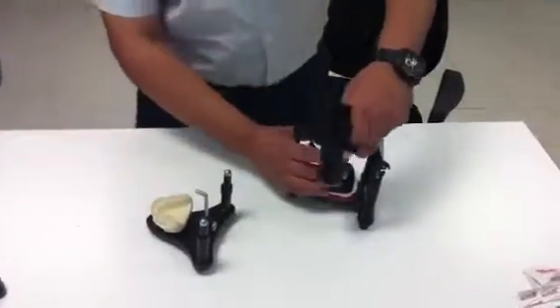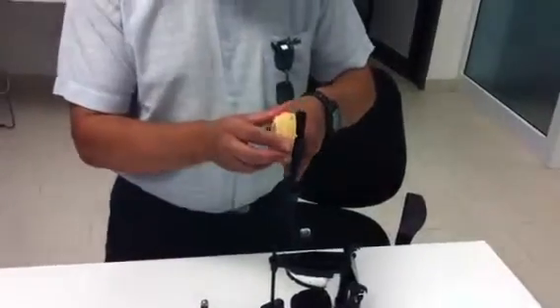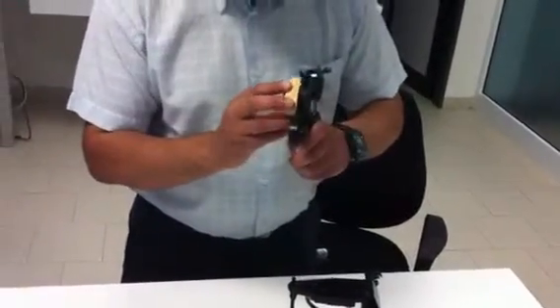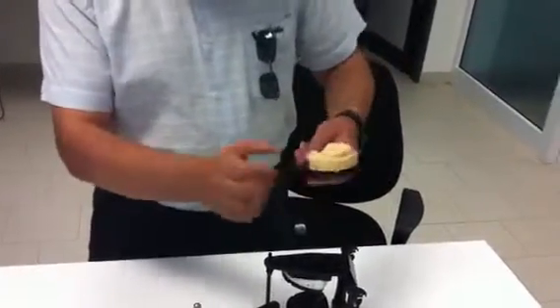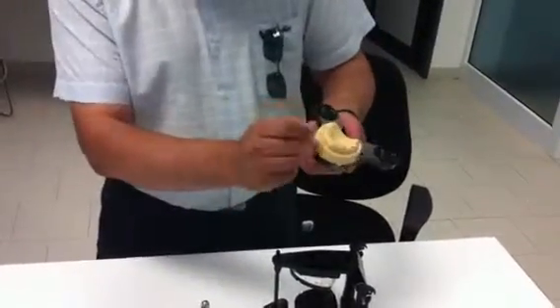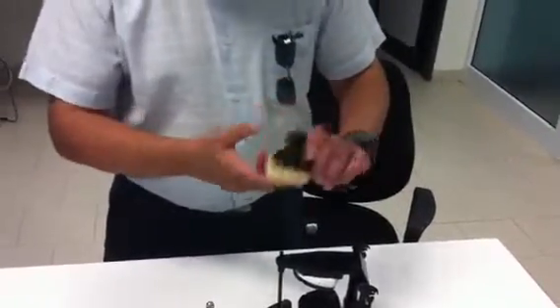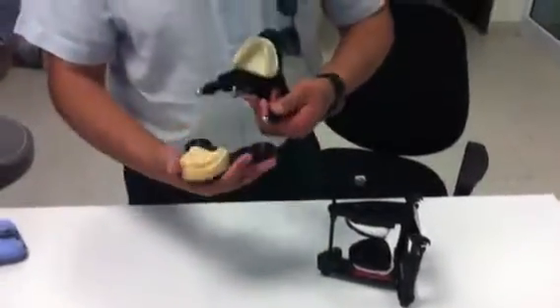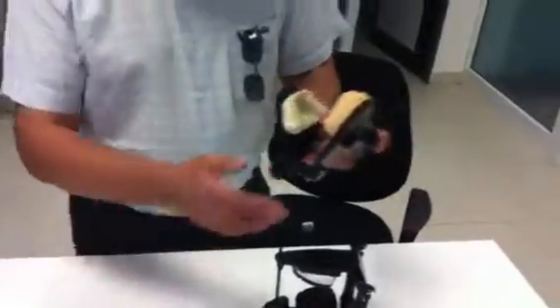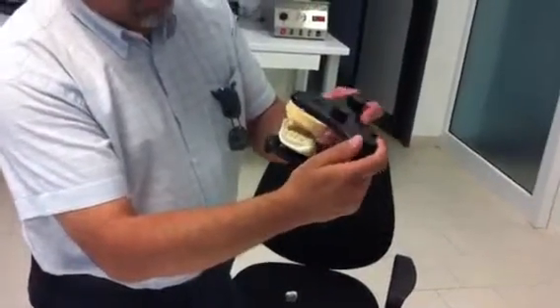It's ease of manipulation — it's ergonomic, so you can actually move it from hand to hand. You can do your contouring and stippling. It just clips back on, and it's nice and strong. It's also got the lateral movements, so perfect.